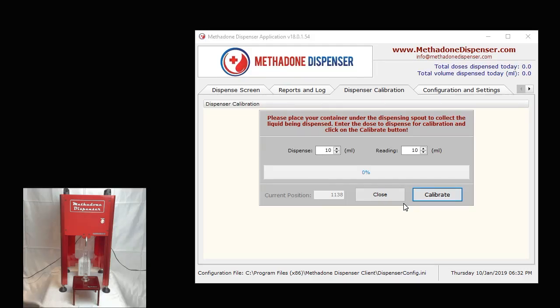The purpose for this is that usually if you do not in reality see 10 ml in your cylinder, you need to run the calibration again and again. What we recommend is running the calibration routine three times in a row, and that would pretty much fine-tune and narrow down the calibration process accurately. Once you're done calibrating, you can just click on close. You can run this as many times — three is what we recommend — but nothing stops you from running it 10 times or however many times and however often you wish.